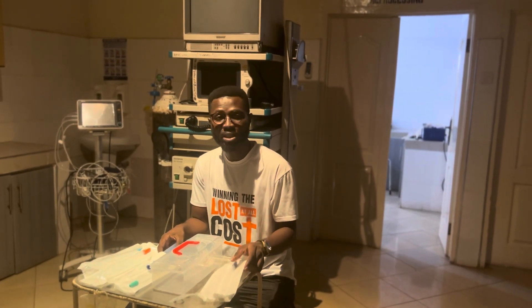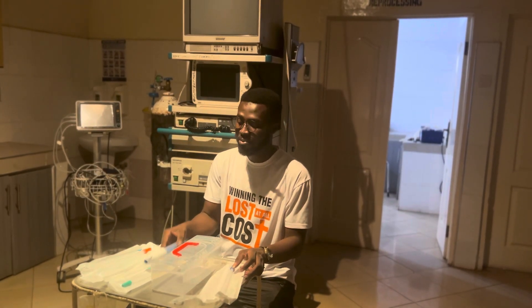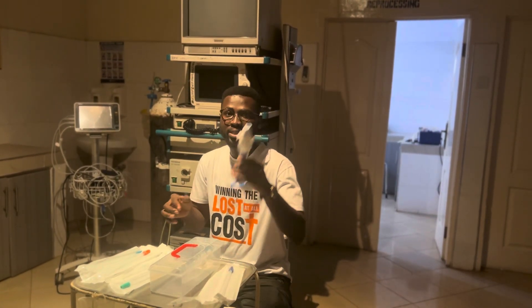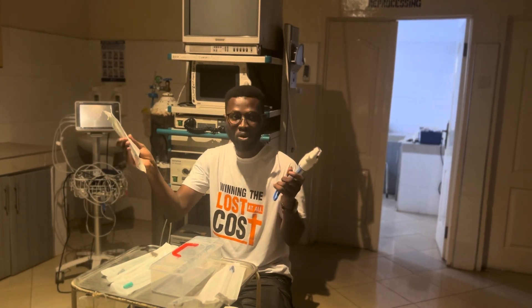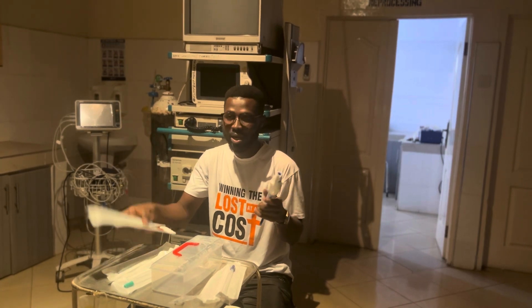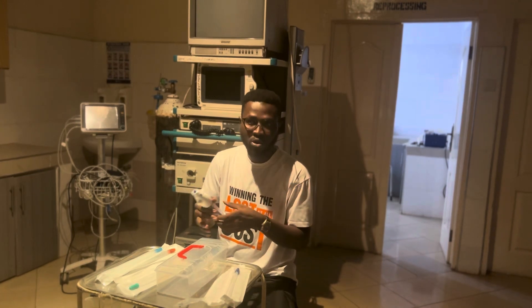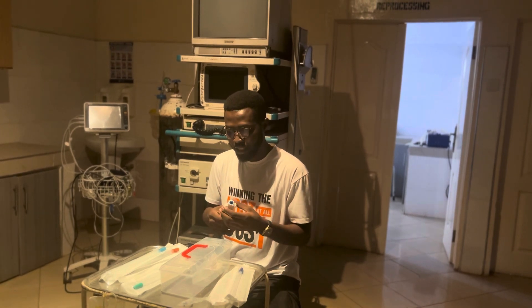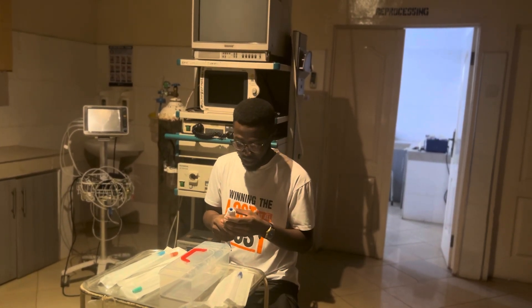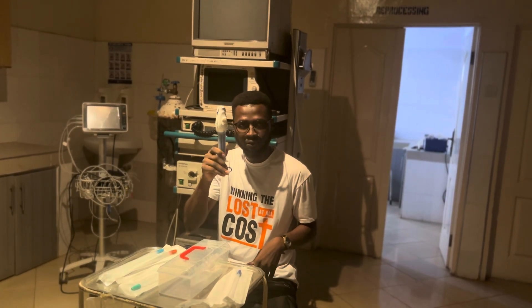But when it comes to the OSCE paper, it can come to you in different formats. For example, it can appear in the unmanned station — the picture station. They will project this and label it A, then project one or two more and label them B, and ask you to identify A and B, what procedure they are used for, the indications, complications, and how we would process this instrument for reuse.